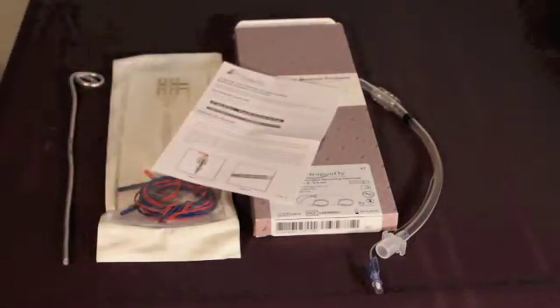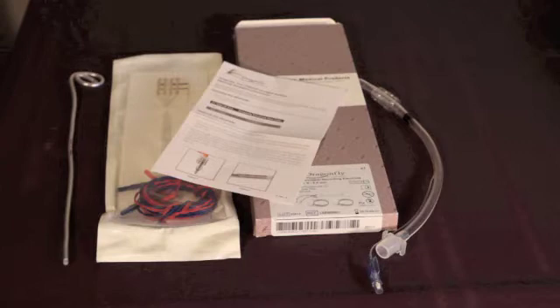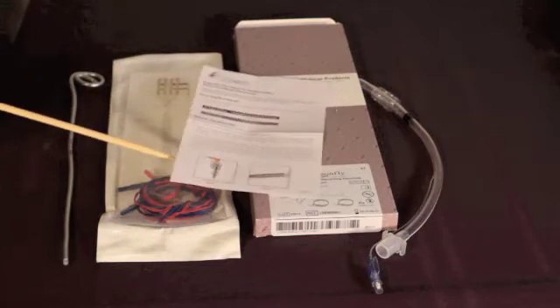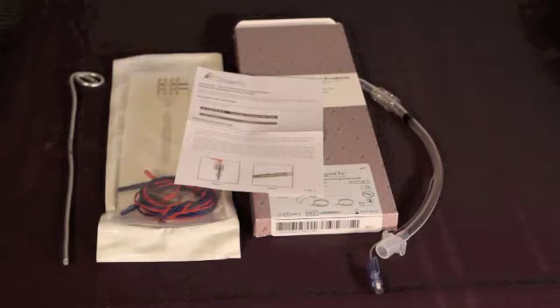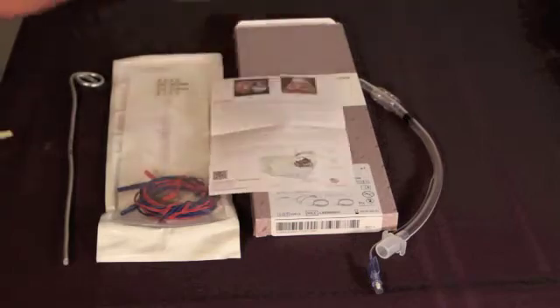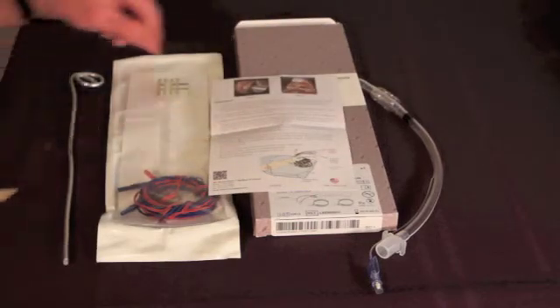This insert provides the information you need to verify you're choosing the properly sized electrode for the endotracheal tube you're using, and it provides information on how to apply the electrode and how to position it for intubation.